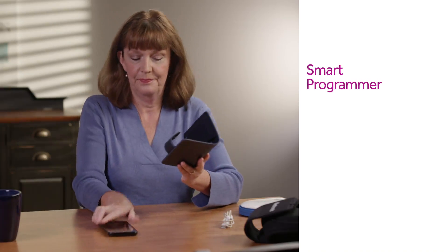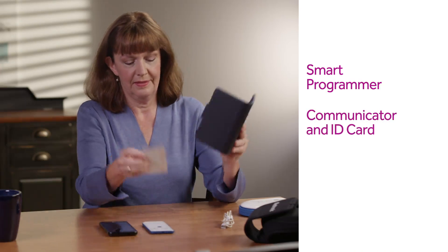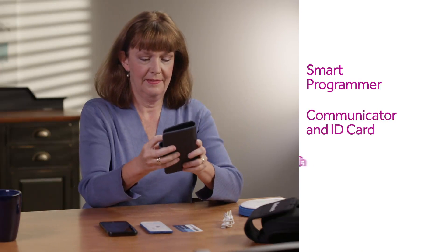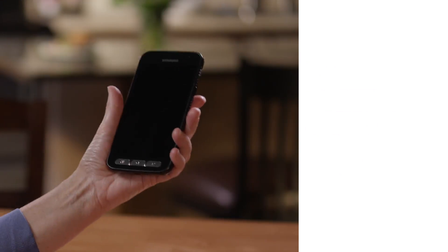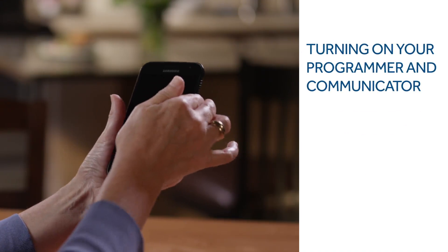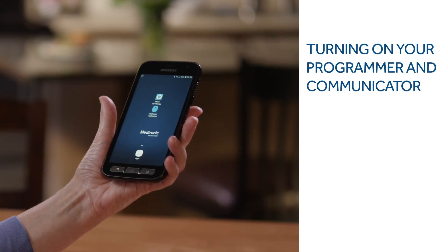Your smart programmer comes in a sleek wallet case. The communicator and your ID card fit inside the pocket. One charging cable charges both the programmer and the communicator. To turn your smart programmer on, press the power button. To unlock the programmer, swipe the screen.